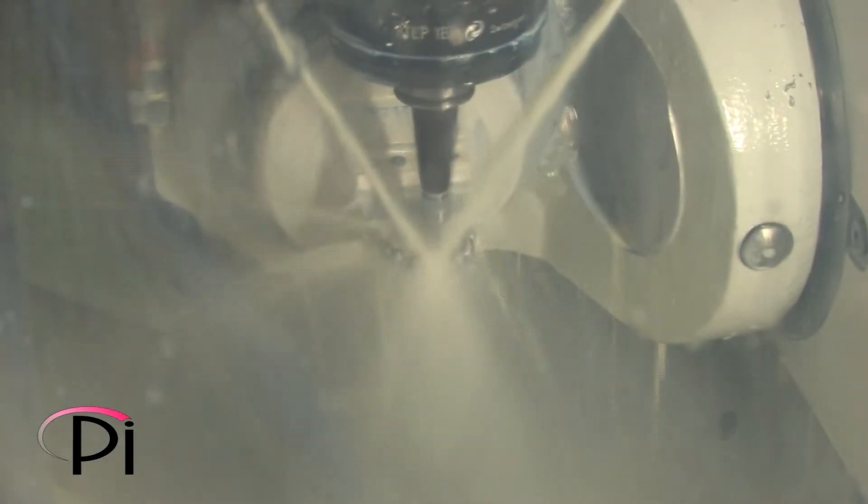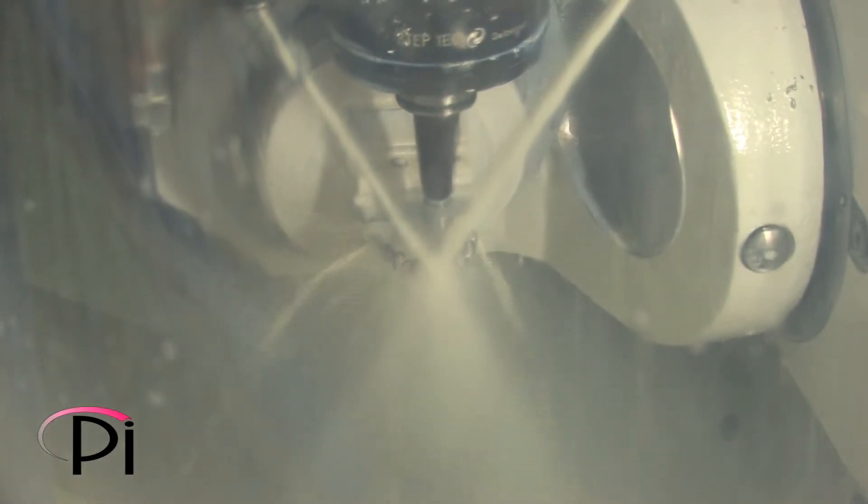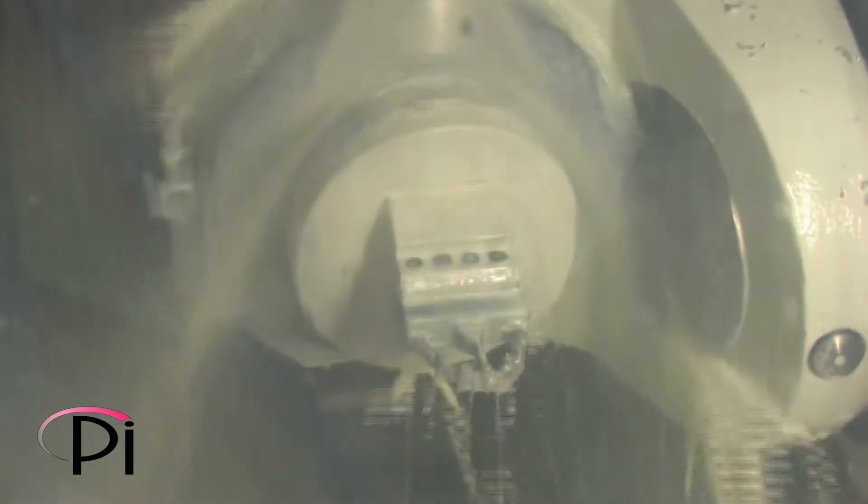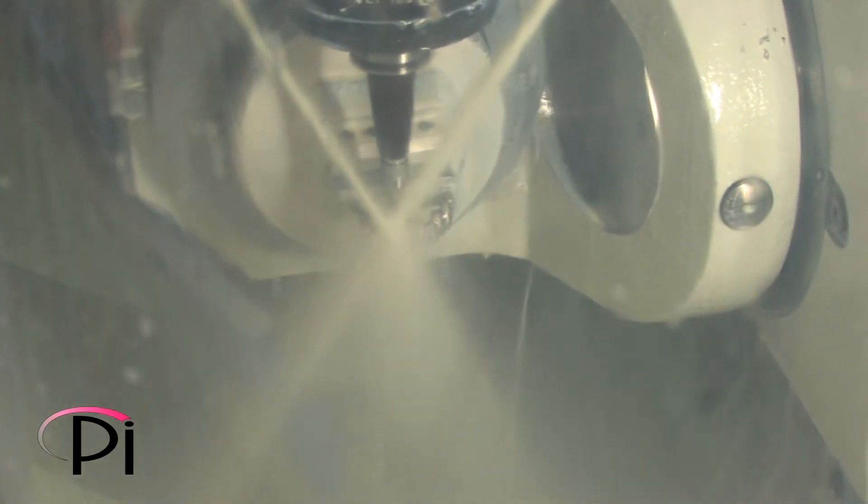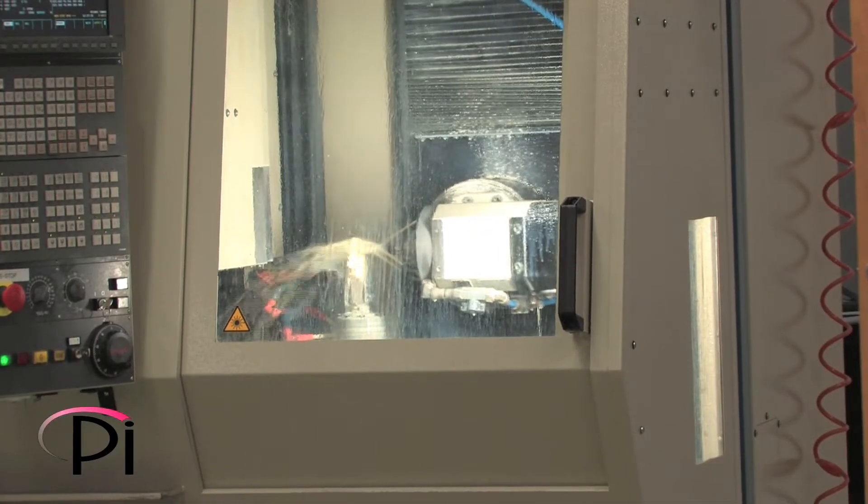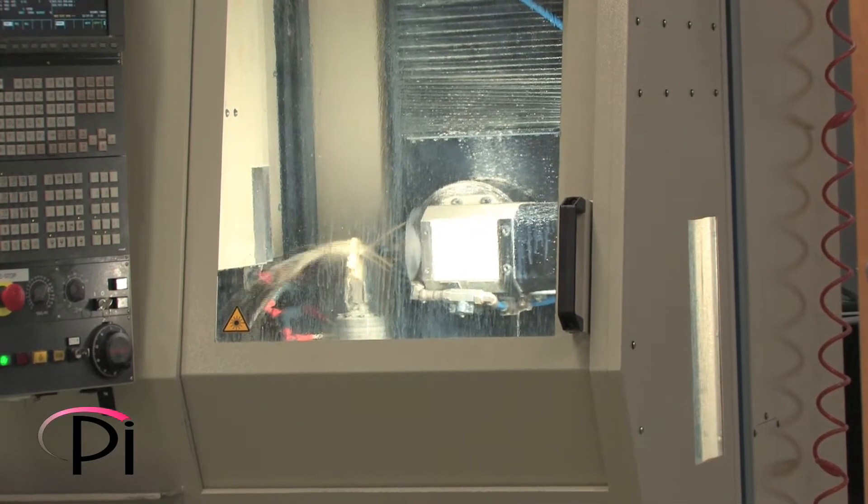The underlying frameworks that support the implant prostheses can be made of both metal and ceramic. The frameworks are milled with five-axis milling machines by one of our vendors based on the design we create in the on-site dental laboratory.